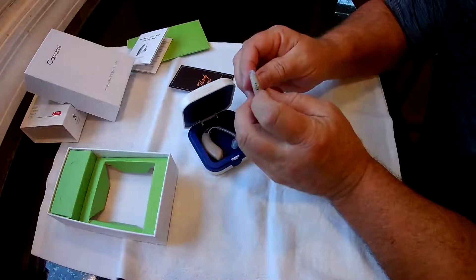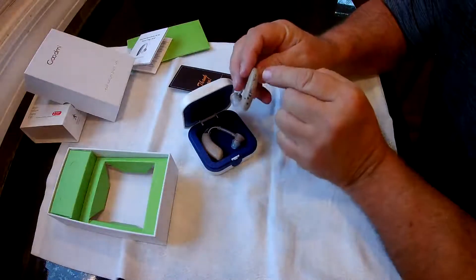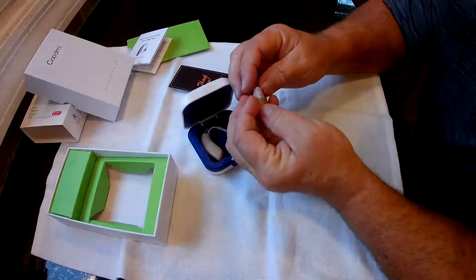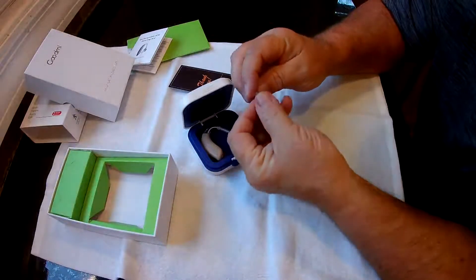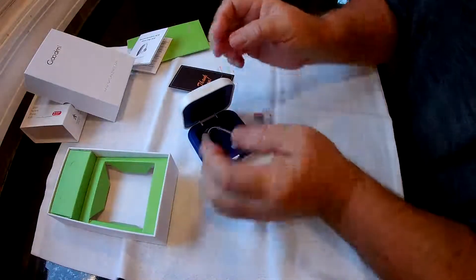The button in the middle is for the mode — it goes up to four different modes and beeps depending on which mode you're in, so mode four beeps four times. You've got volume control that goes from one to four; it looks like it's on three. You might want to turn that down before you first use it, as it can get pretty loud.